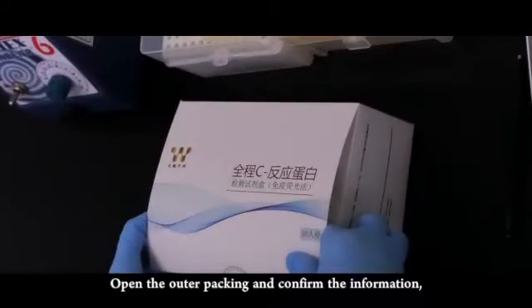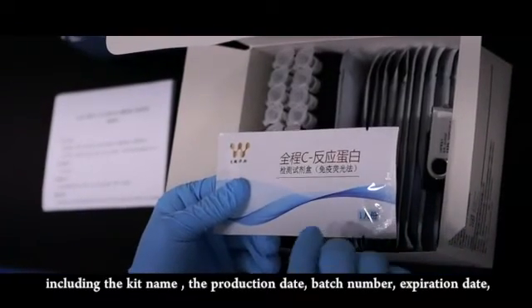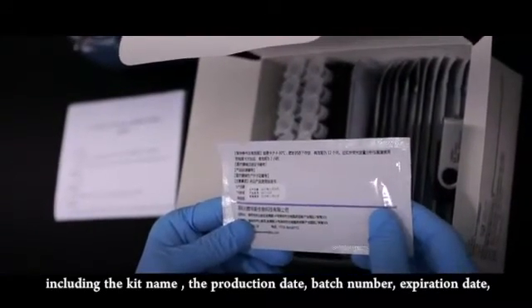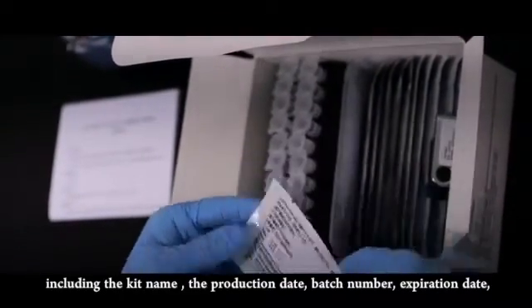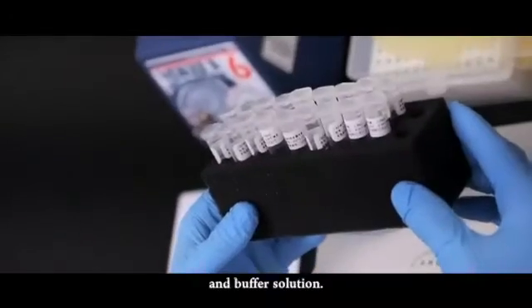Open the outer packing and confirm the information, including the kit name, the production date, batch number, expiration date, ID chip, and buffer solution.